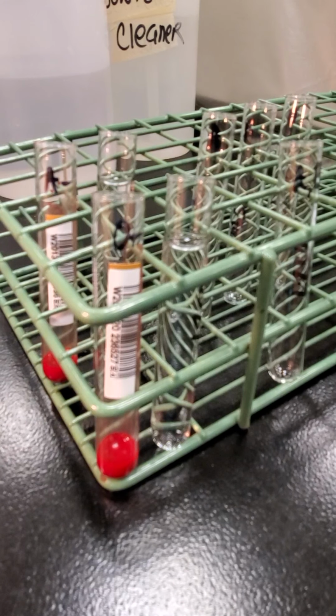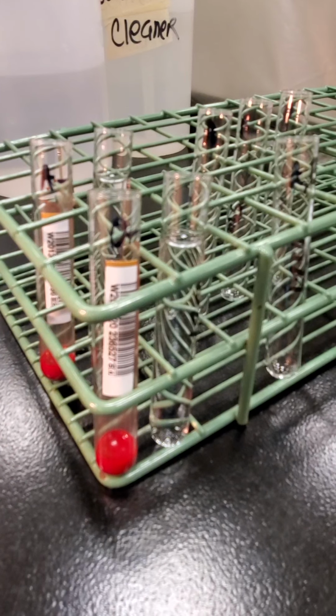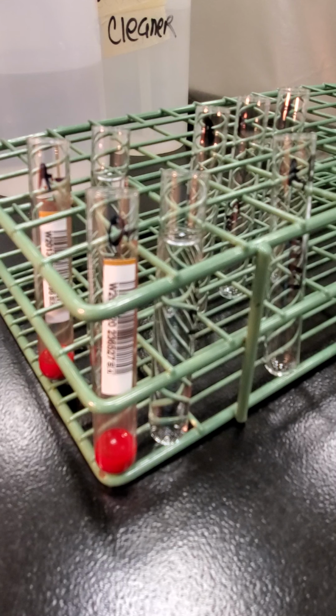Hi, welcome back. Today we're going to be doing unit processing, so we're going to be confirming unit types from a supplier. St. E's Maine uses Red Cross as their blood supplier, so we do this anytime we receive a shipment of red cells in.